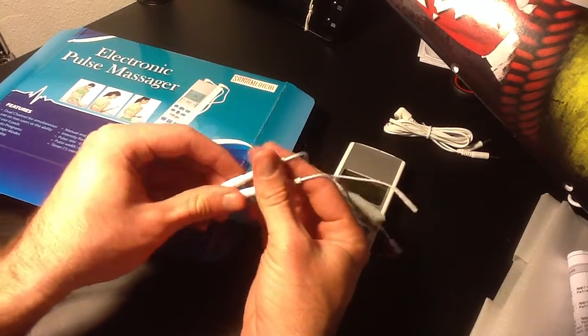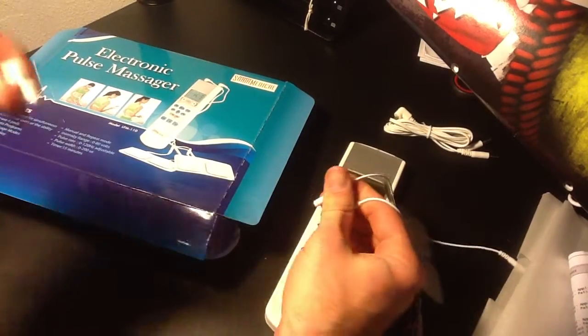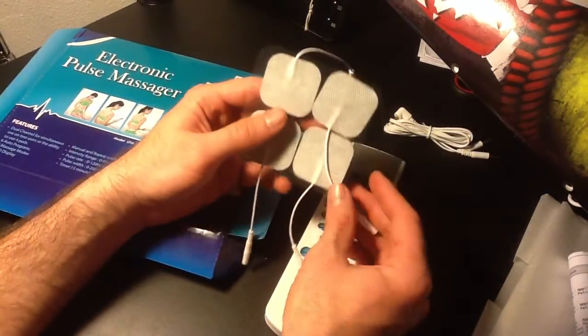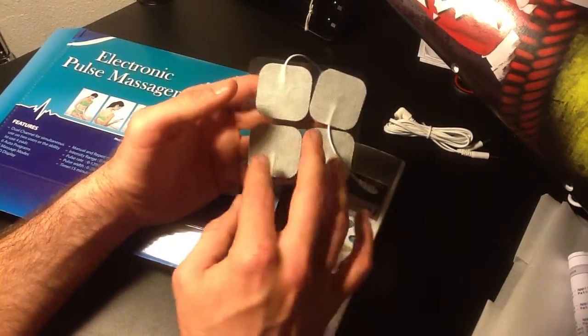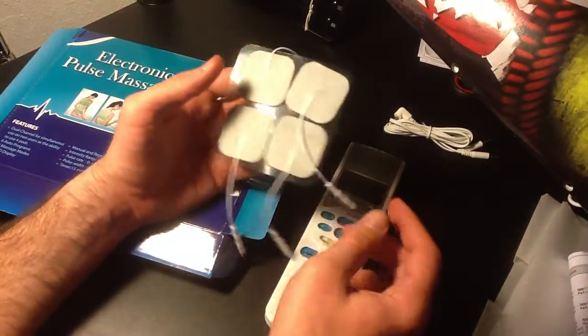These are reusable, although in time, their efficiency for sticking to your skin kind of fades. But they do a great job. I'm using two at a time. You can use all four at a time if you want as well.